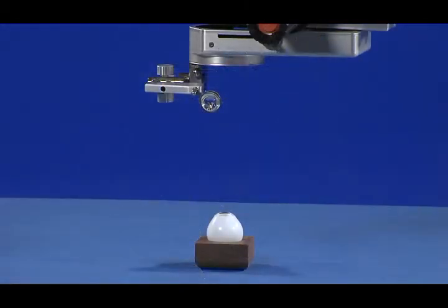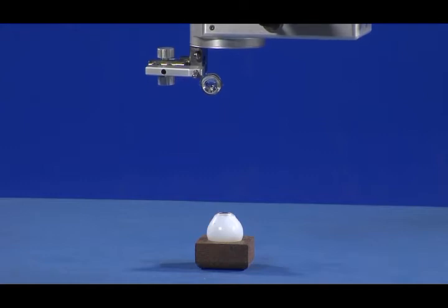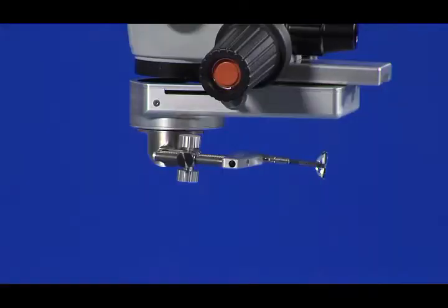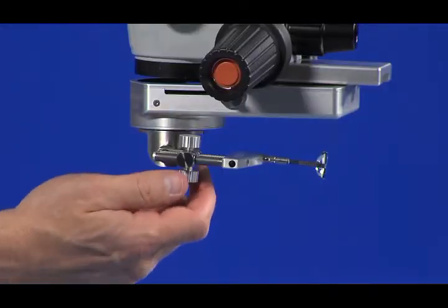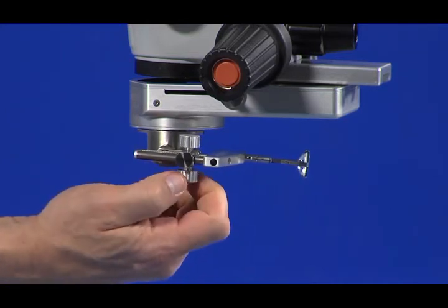Step 1 is to use the microscope focusing pedal to move the microscope up about 2 cm from its starting point. Step 2 is to adjust the LPU focusing wheel so that the LPU focusing adjustment is at its upper travel limit.